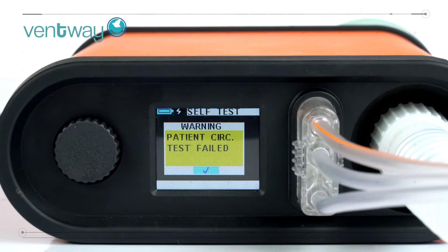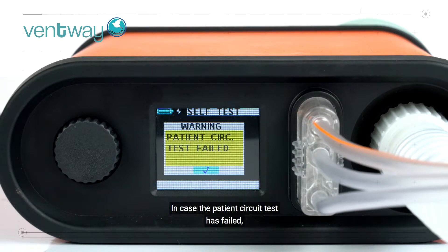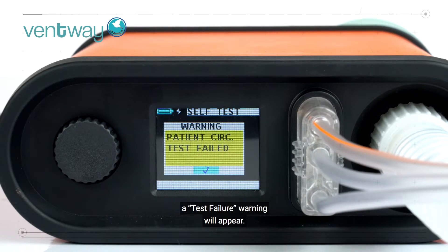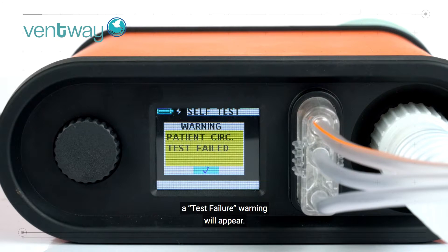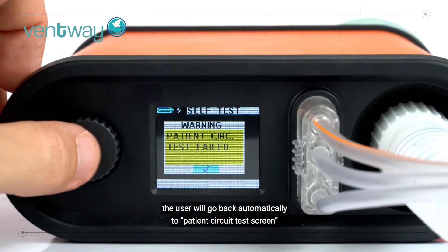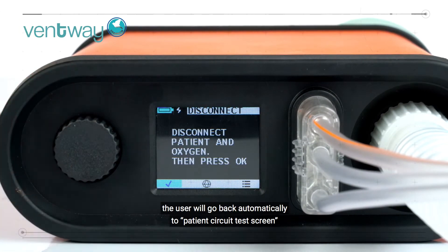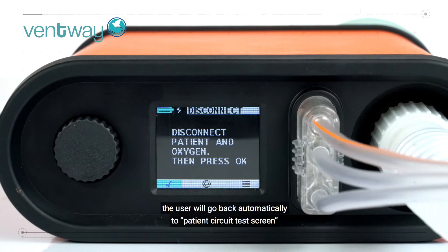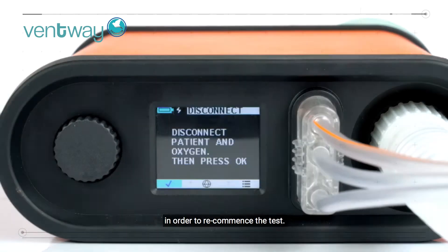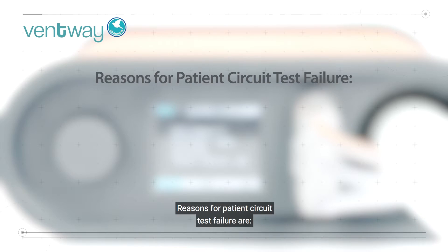In case the patient circuit test has failed, a test failure warning will appear. By acknowledging it, the user will go back automatically to the patient circuit test screen in order to recommence the test.